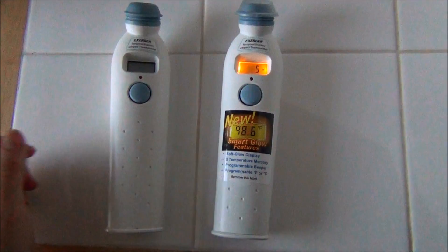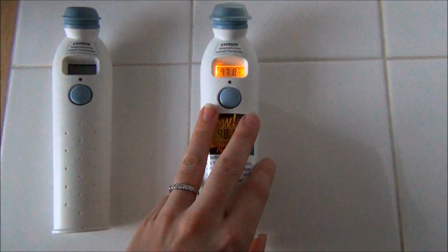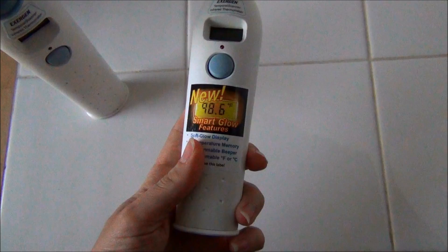Really really impressed with these. Can't have enough good things to say about the original, but I do love all these new features. So while the original was our favorite, this new one is our new favorite.